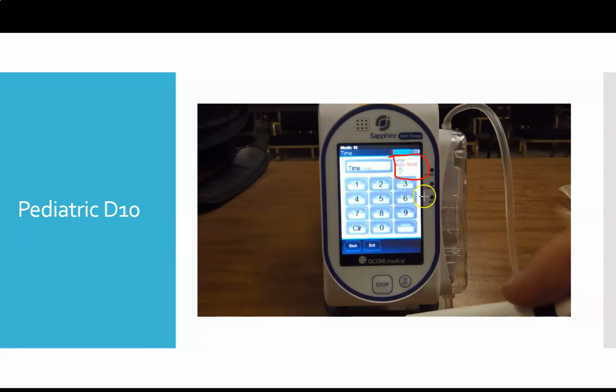The lowest value that's up here in red, which is this one right here, is the quickest amount of time the pump will allow you to give the volume of fluid that you want to give. So if we're giving a fairly small volume, we're only giving 50 mL, the pump says, yeah, I can crank that out in 4 minutes.